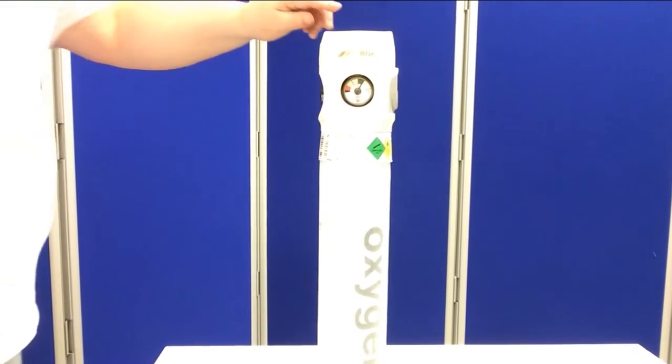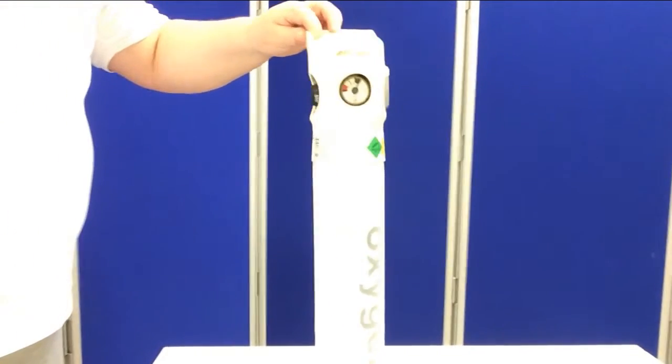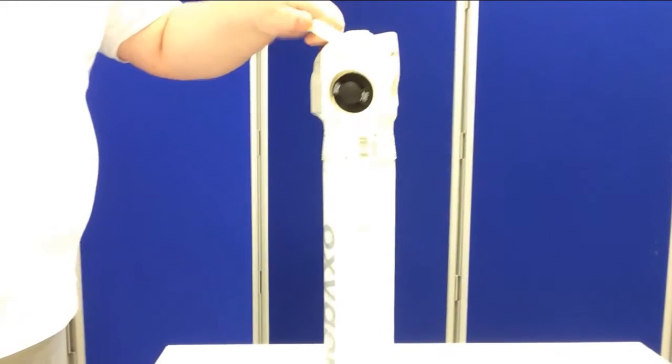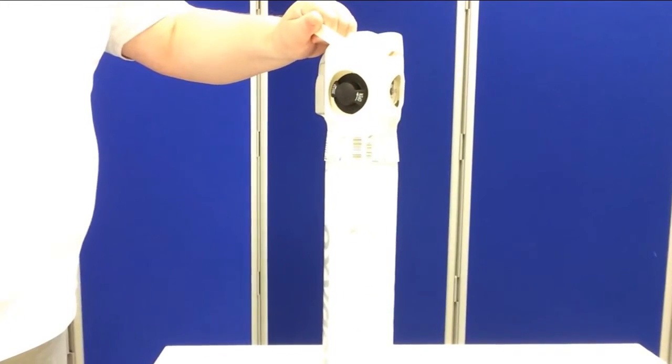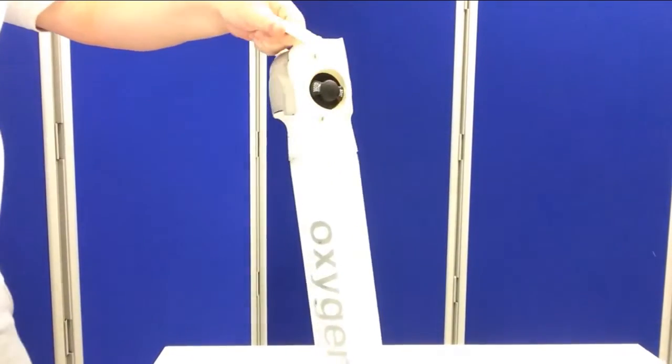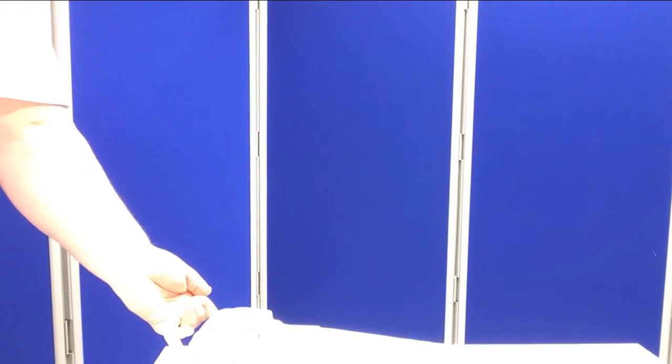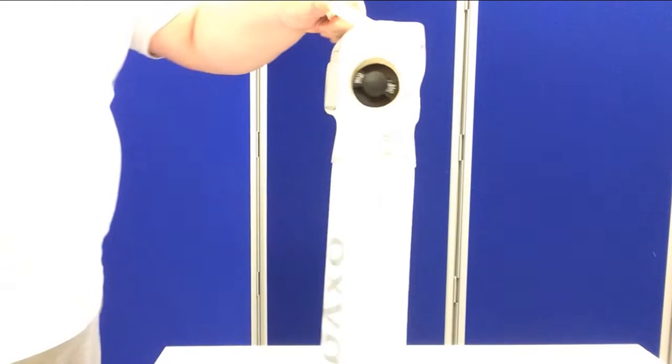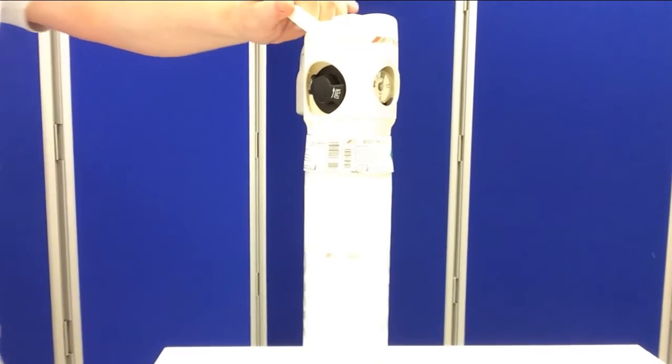When using an oxygen cylinder, you can see how wobbly it can be. You should either be holding on to it when you're setting it up or lay it down flat so that it can't fall any further. Never have it up on a work surface. If it falls down, it's likely to cause damage to the cylinder, as well as any toes it happens to fall upon.